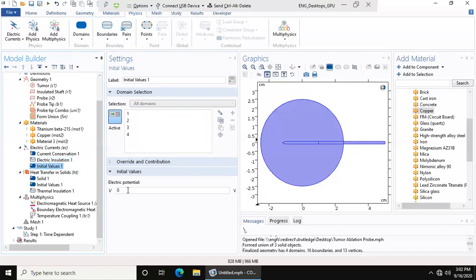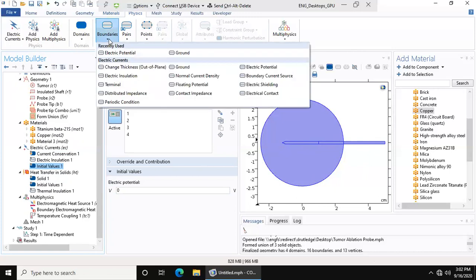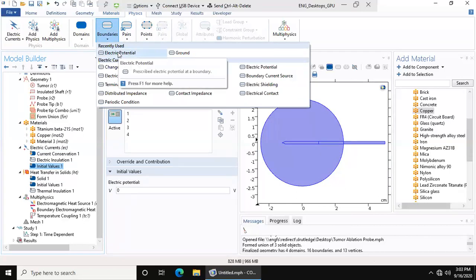Initial values: we want our initial value to be zero volts. This is your initial value throughout the entire geometry. If this was already one volt, you'd put it one volt and then you would change the probe to add more voltage. But we want it to start at zero volts because there's going to be some current throughout the body, but it's going to be negligible for this process.